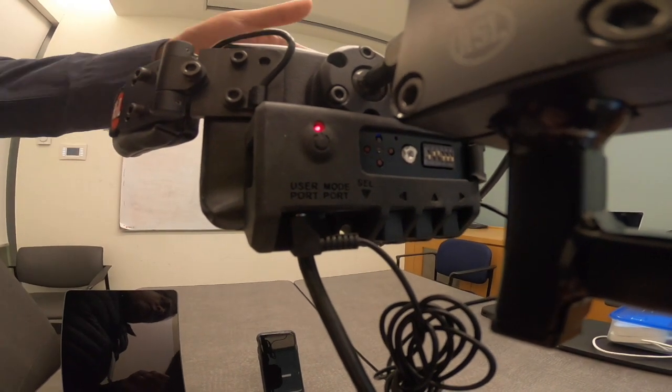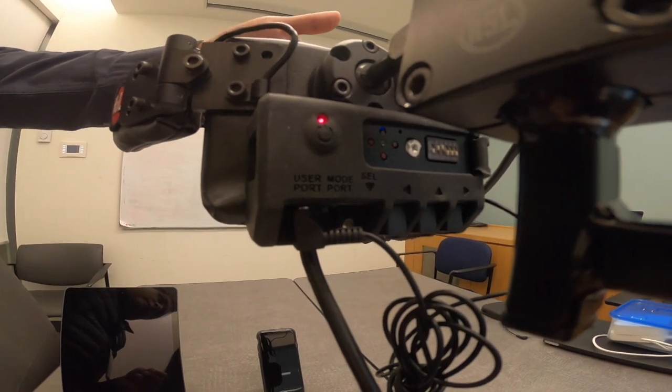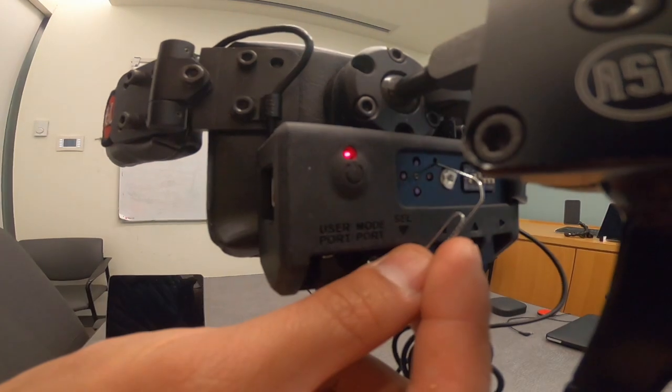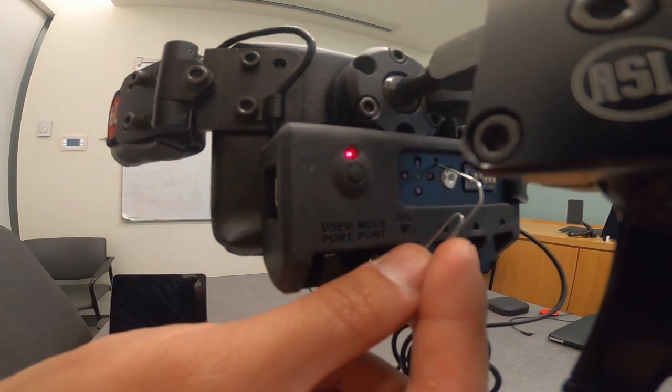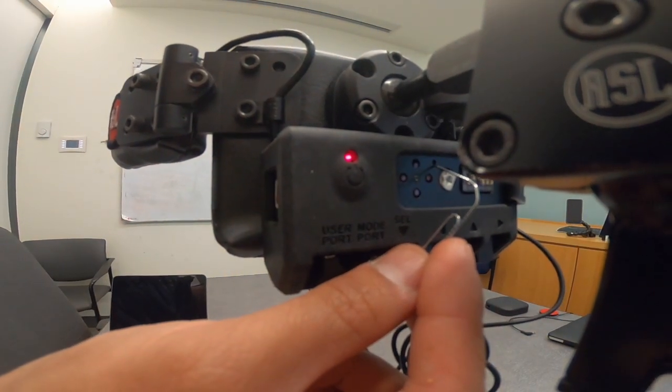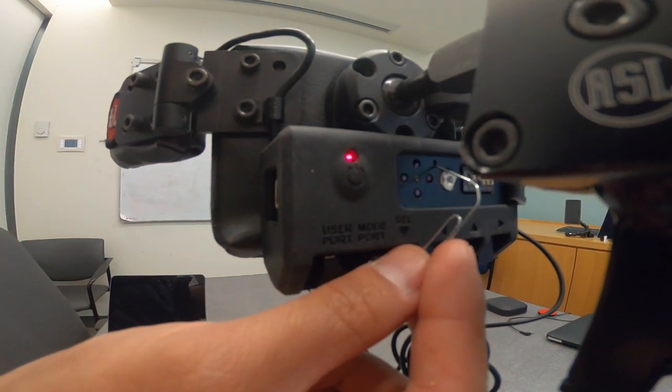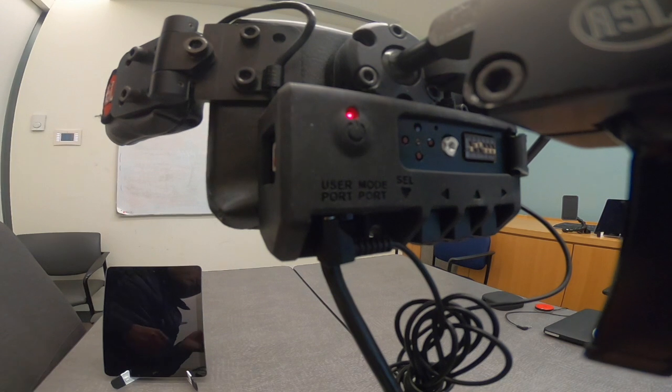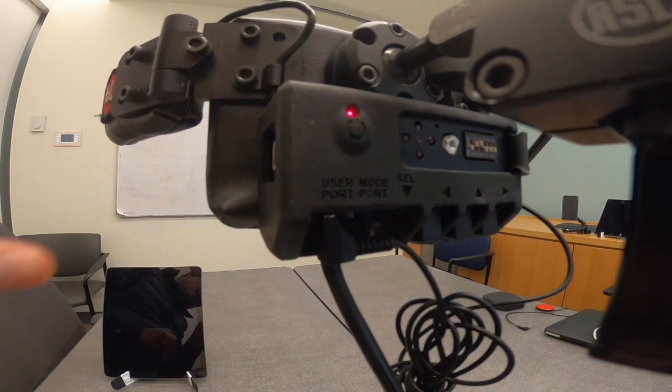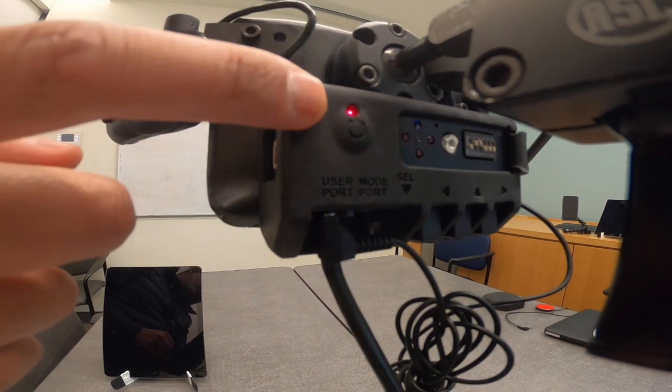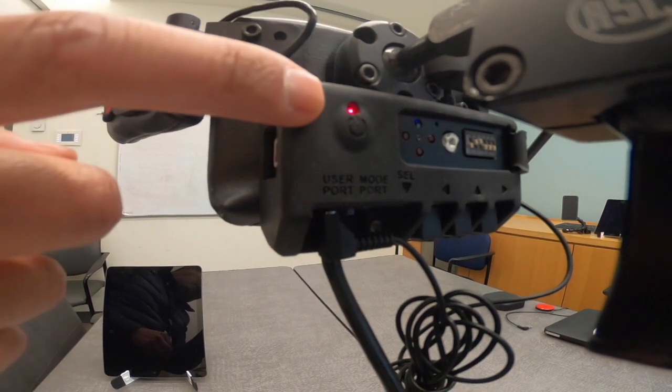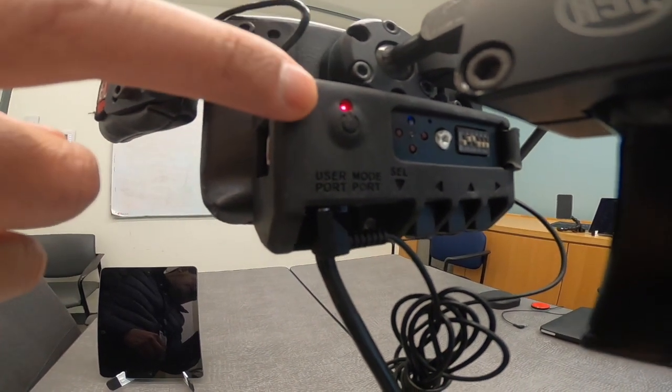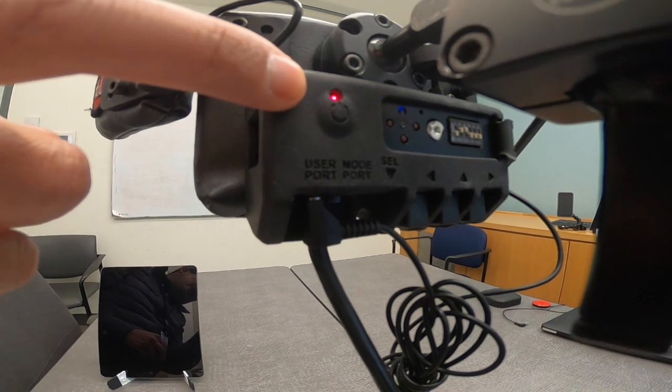Users can go left, right, or move their head back. Also, it is important to note the tiny pinhole located beside these lights as it works as the pairing button. We will use this pinhole to connect the head array with Tecla.